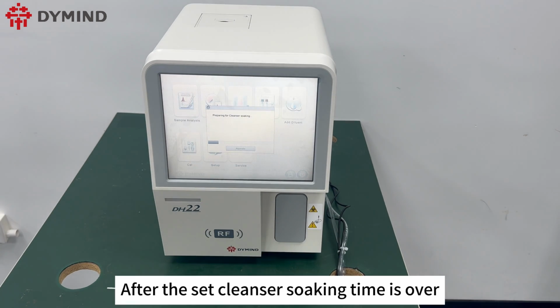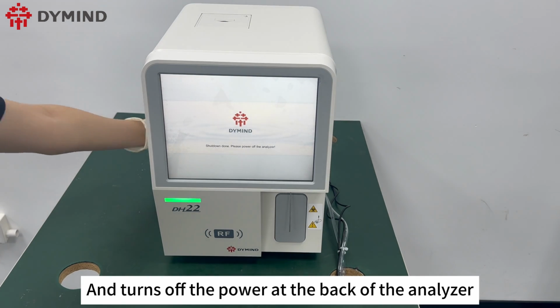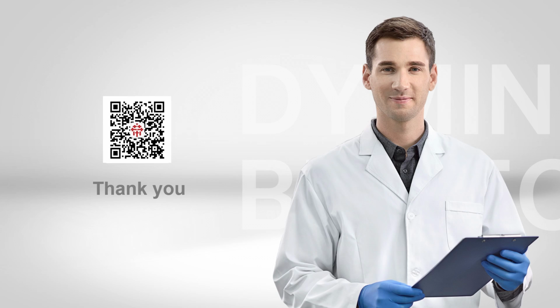After the set cleanser soaking time is over, the screen indicates that the analyzer can be shut down and turns off the power at the back of the analyzer. If you encounter any issues, please contact Dymind customer service.